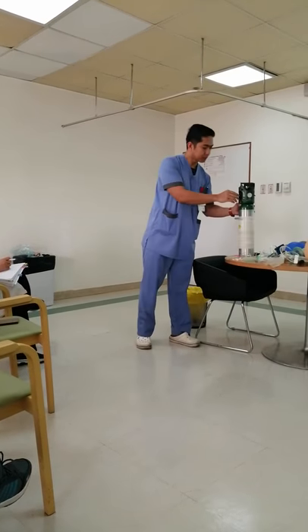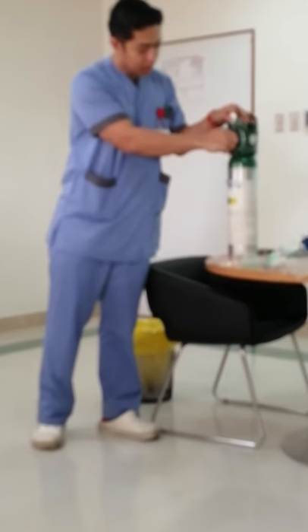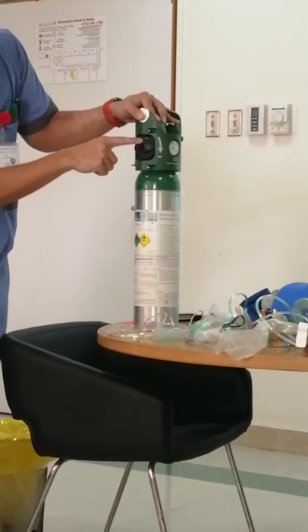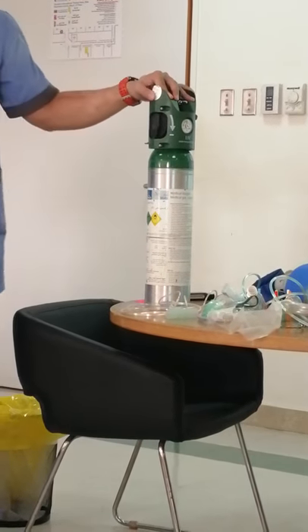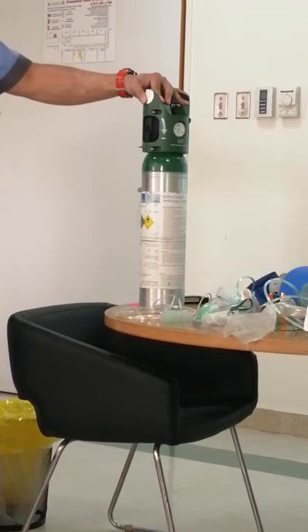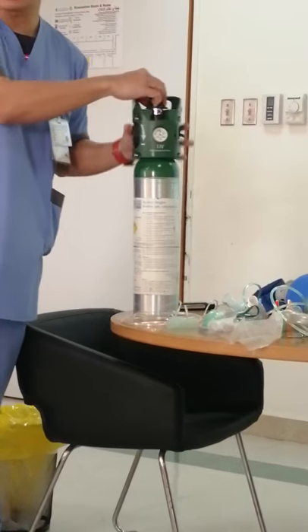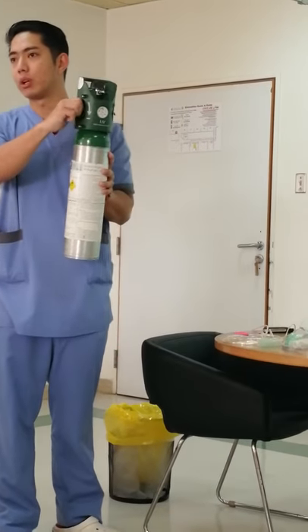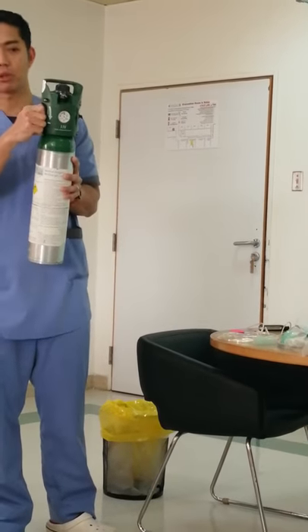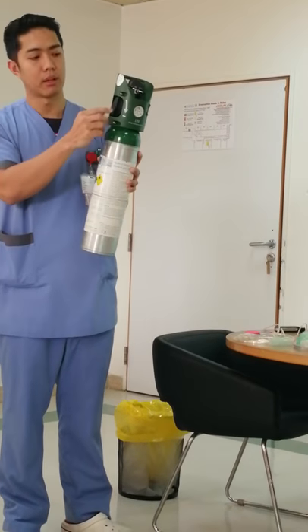So here we have a knob. If you will turn it counterclockwise, it will open. If you will turn it clockwise, it will be closed. Before you can dial the knob, you have to first switch on the main knob, because no oxygen will come out unless you keep this one open.